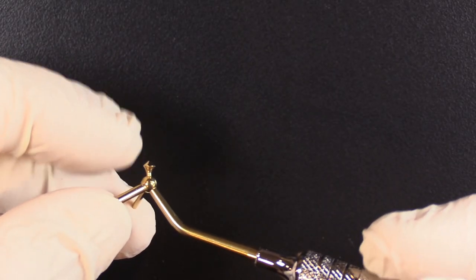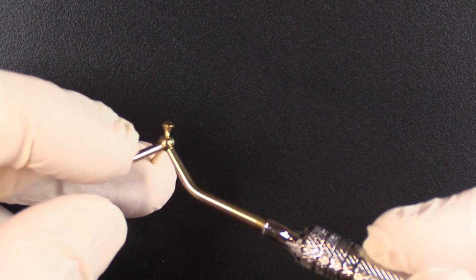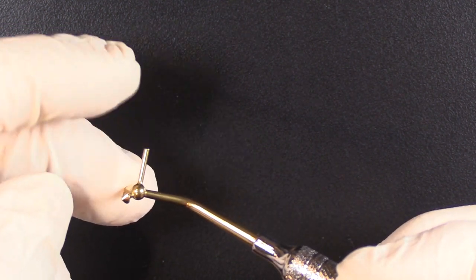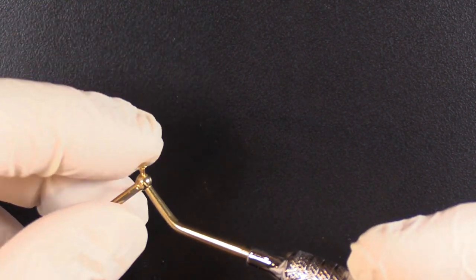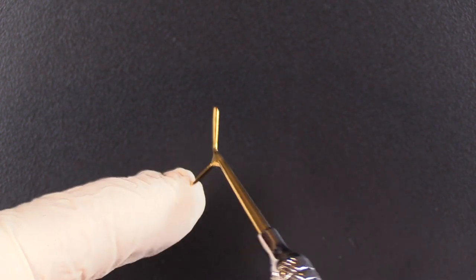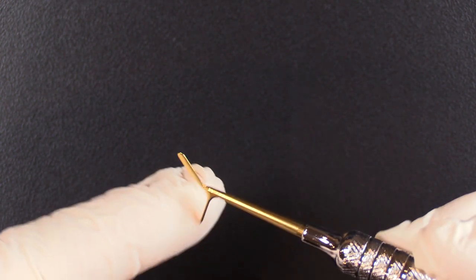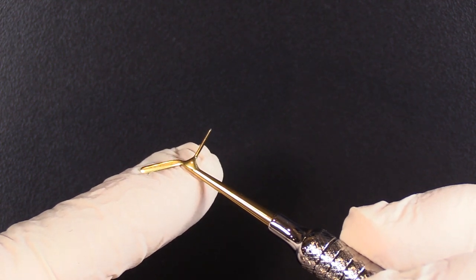On this end, you can see we've got an acorn carver for occlusal anatomy. We've got two sizes of condensers to compress the composite down into the restoration. On the other side, we have both angles of thin-bladed sculpting shaping instruments. So, five in one, and it is truly unique.